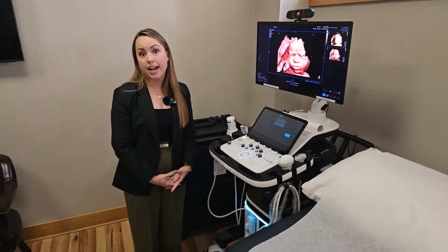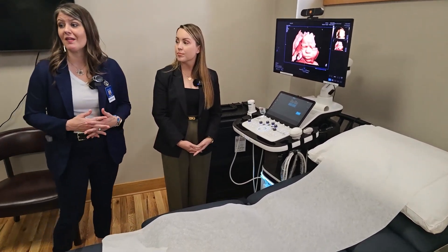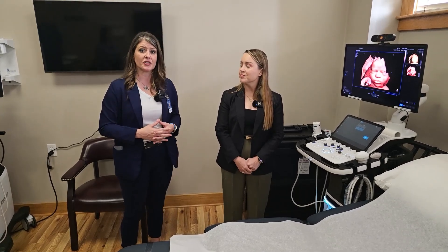It's great for access to care. The Sonosync program is also being used a lot in colleges for sonography education — you can have nine different ultrasound students learning to scan while the professor sits at their desk and sees everything going on without hovering over the student and making them nervous while they're learning.